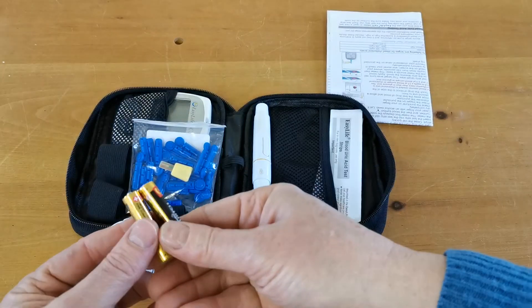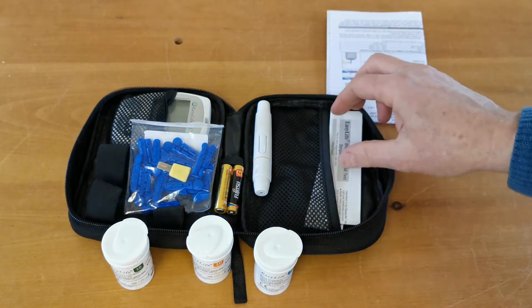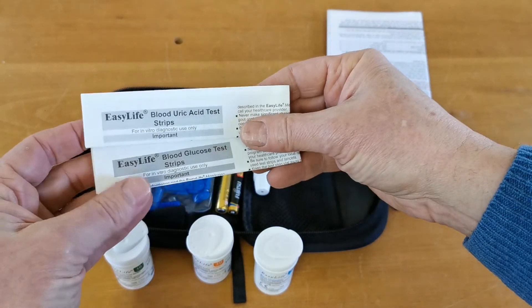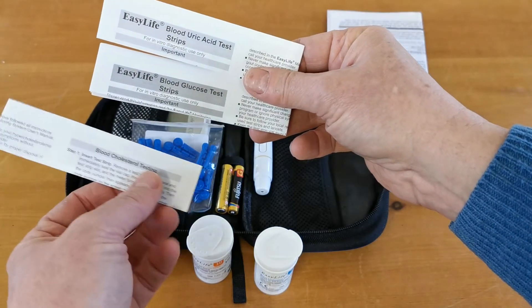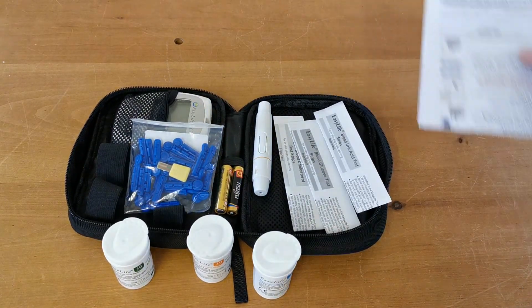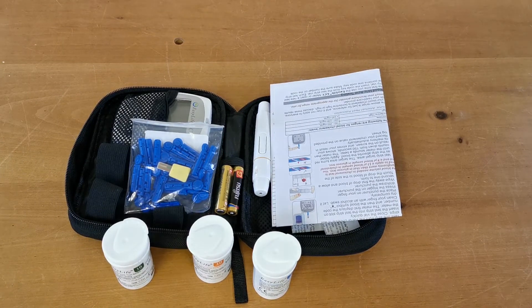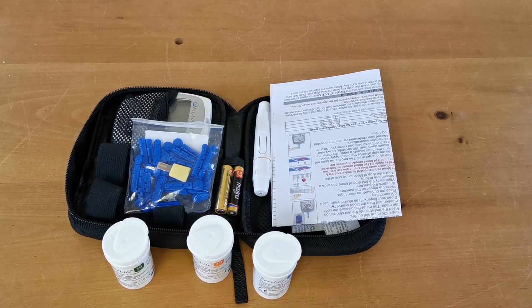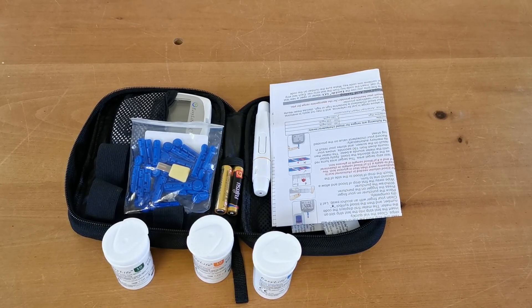Also included are two AAA batteries to power the meter — standard AAAs, not rechargeable, replaced when the power runs out. Individual instruction leaflets (IFUs) are provided for each strip type: one for uric acid, one for blood glucose, and one for cholesterol. The starter pack retails for around £39.99 including delivery. Refill test strips are widely available online from the ValueMed website, eBay, and Amazon.